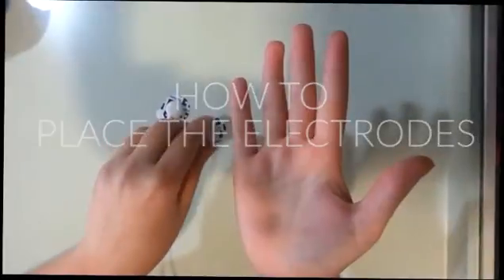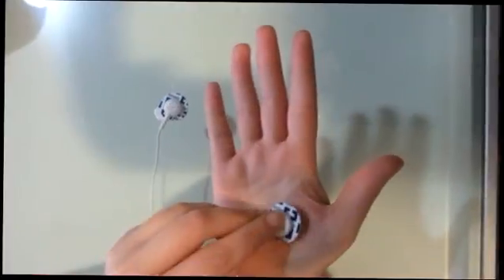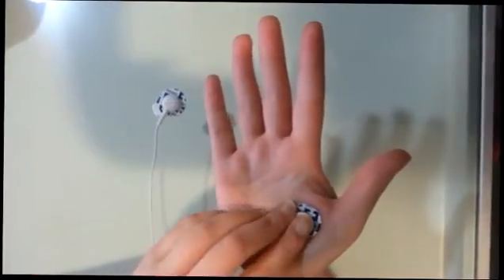To do this test you first need to know how to place the electrodes. Place the positive and negative electrodes on the palm of your hand as you see on the video.